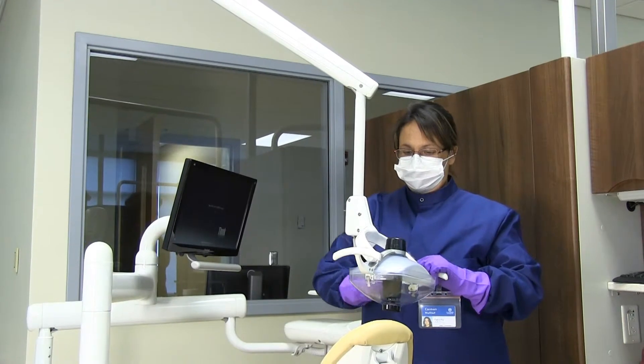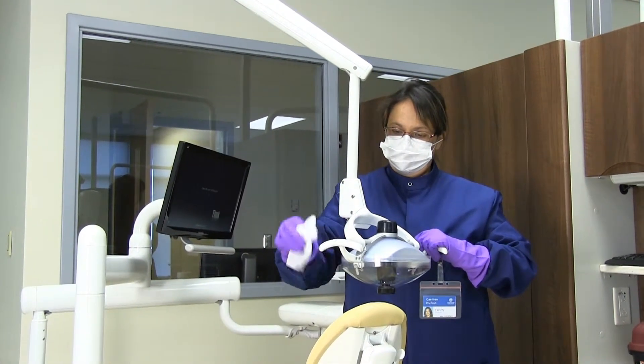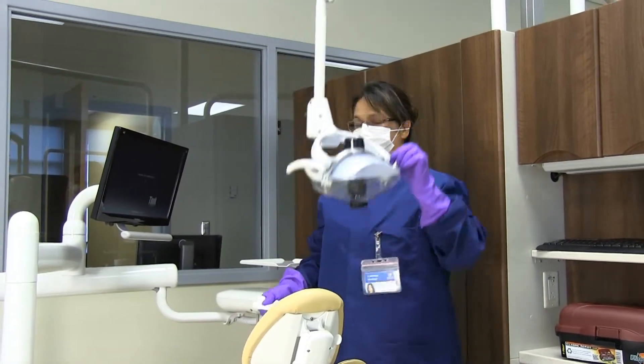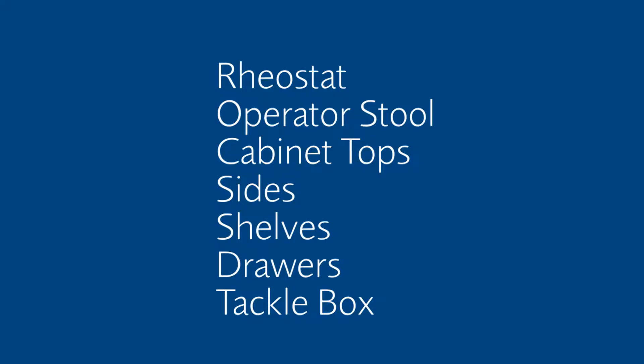With a new disinfectant wipe, continue to the patient's chair, top to bottom. Wipe down and away with overlapping strokes to ensure complete coverage. Discard that wipe. Wipe the rheostat and discard that wipe.